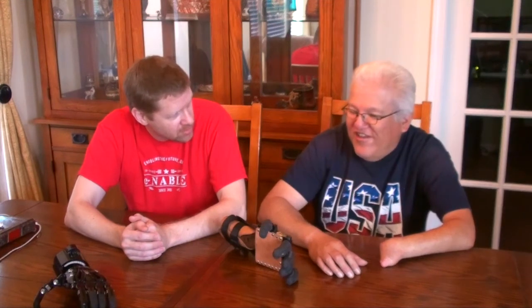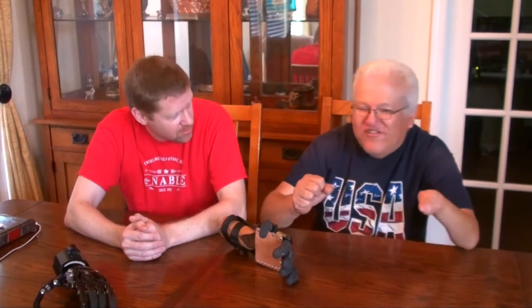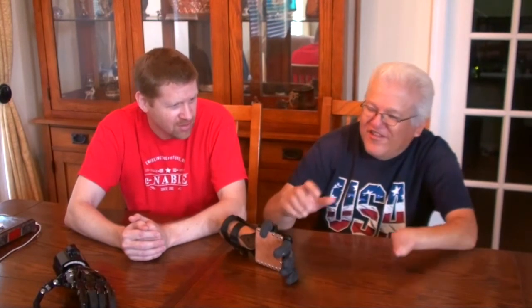What other things have you found that it works well for or doesn't work as well for? It works good for basically everything I do at work — that's what I need it for. And you use it for driving too, right? Yeah, for driving too. You can grip the steering wheel. I can grip the steering wheel, yeah, and drive. Well, I'm glad it's working out so well for you, and I hope you get many more years of use out of this. Since you put these rubber pieces on, I grip the steering wheel a lot better.